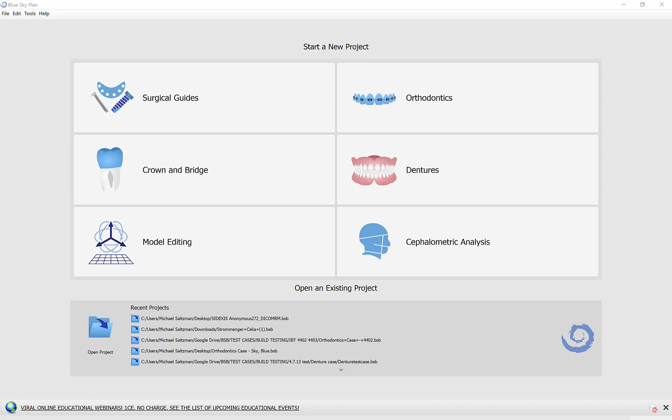The most significant upgrade and change that we made to the process flow is actually at the end of the process flow that you can now, in addition to exporting an STL file, you can generate a configuration file that can be sent to a milling machine to mill the created crown. This functionality is free in the Blue Sky Plan software so you can design and you can export to a mill at no cost and this functionality is going to stay free for quite a long time.